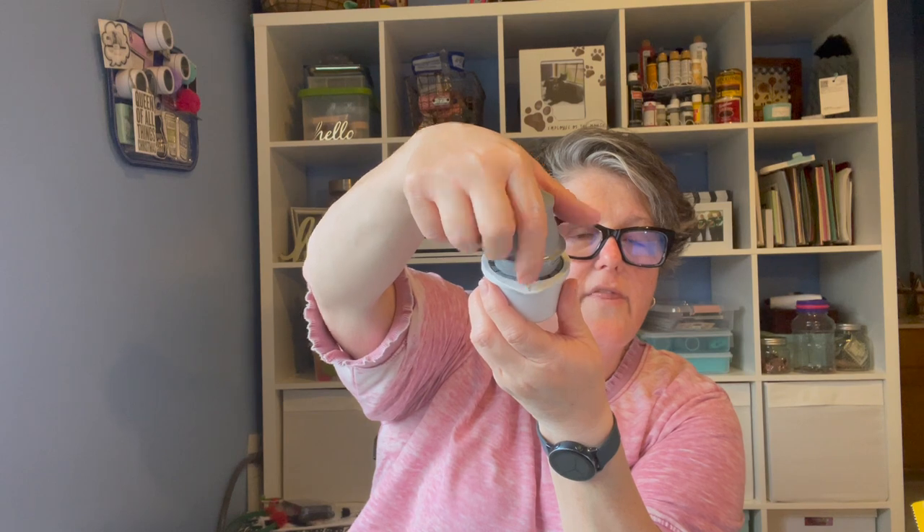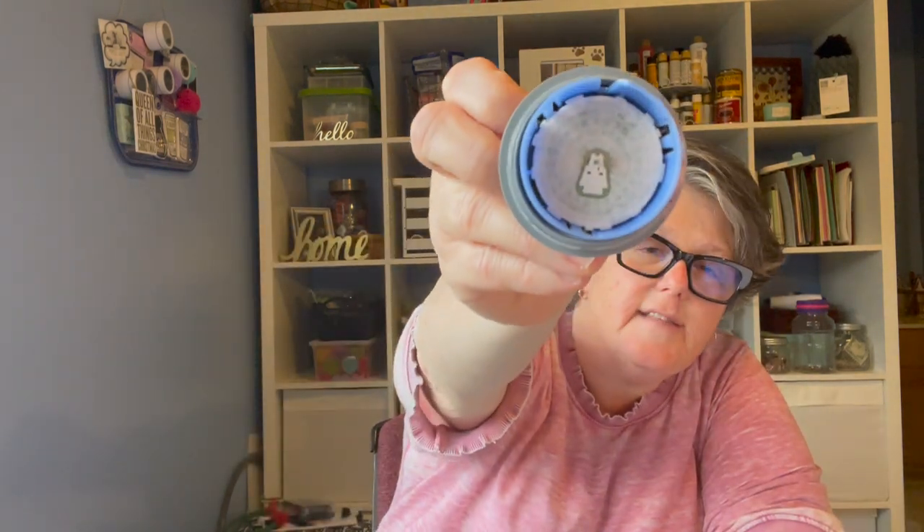This thing that looks like a juice box — you open it up and remove the plastic cap; it just unscrews. This is the adapter that attaches it. There's a line that goes down and it matches the line on the sensor, so you just line them up and then squeeze it — now it's loaded. Pull it apart: this side is empty and this is the inside of the sensor. The white you see is the adhesive. Make sure your skin is dry from the alcohol, then you just push it. I've done it four times now and I don't feel a thing.